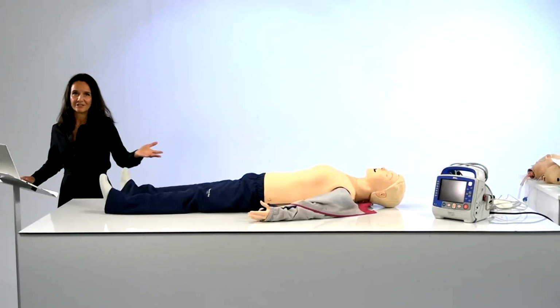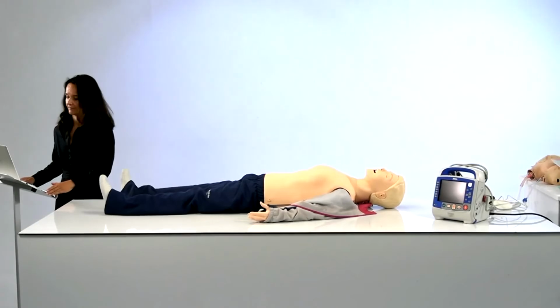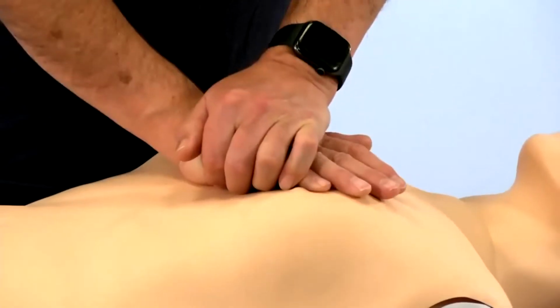My colleague will now join me for help with compressions. Yeah, take it away, Björn.